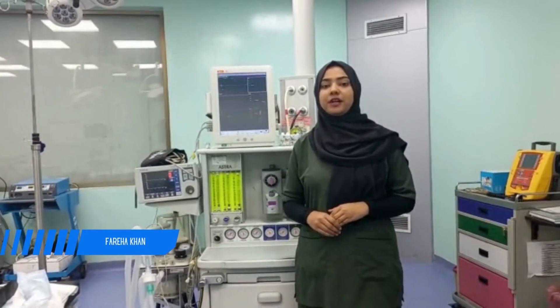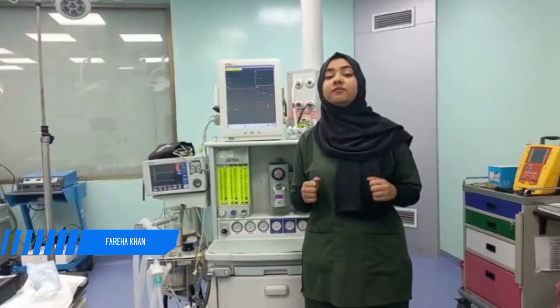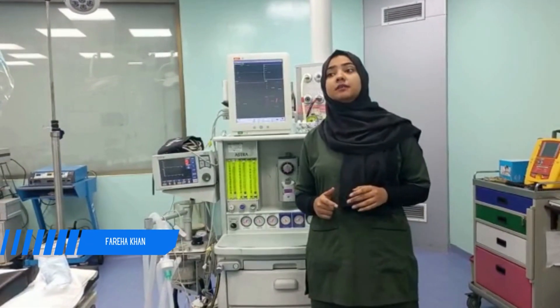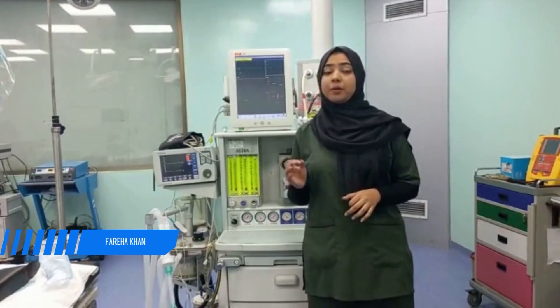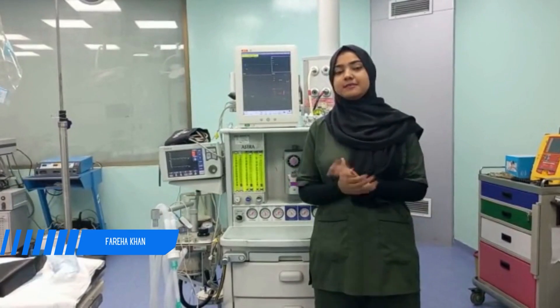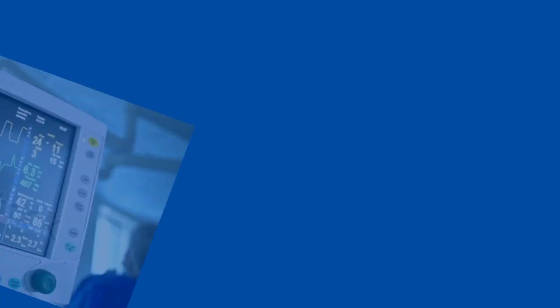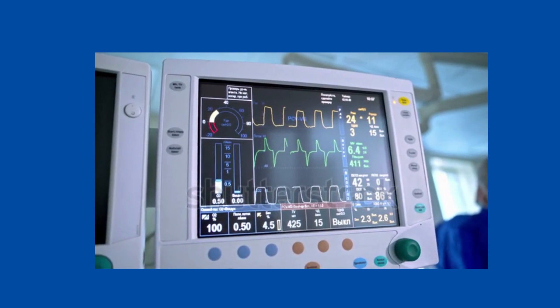My name is Farah Khan and I am a final-year student of surgical technology. Today I am going to discuss some basic safety features of an anesthesia machine that are common across machines. First, we will talk about the alarming system.